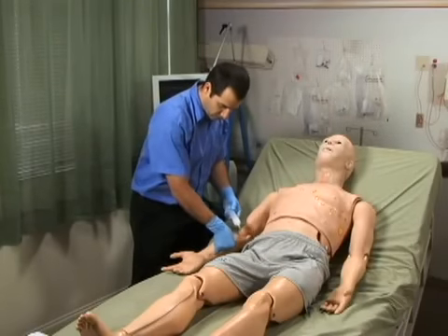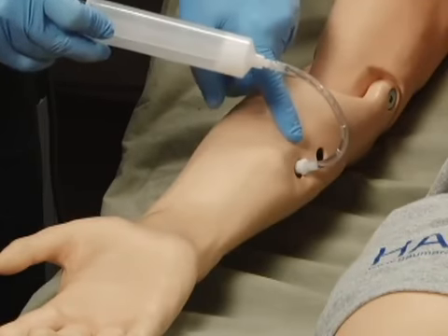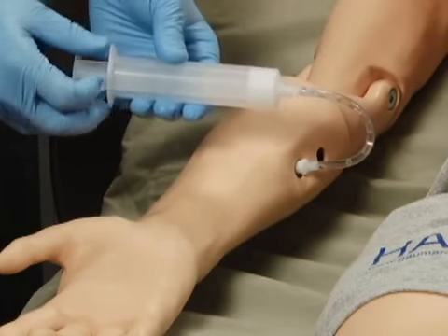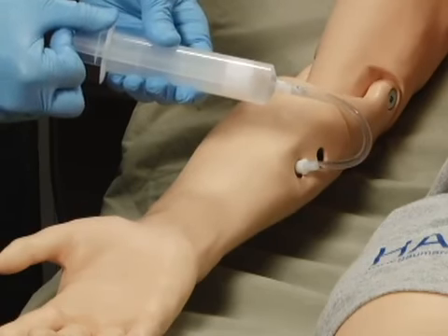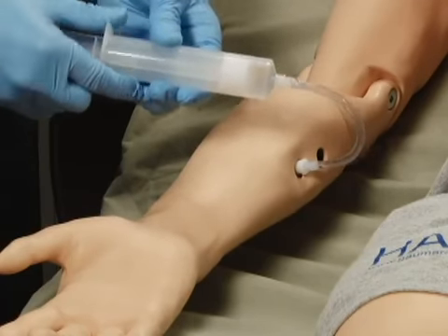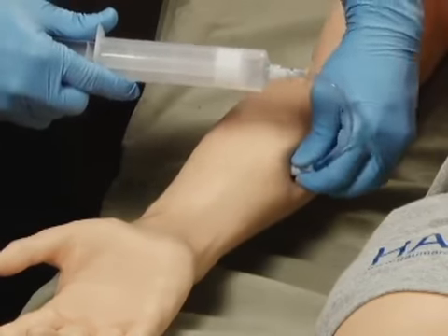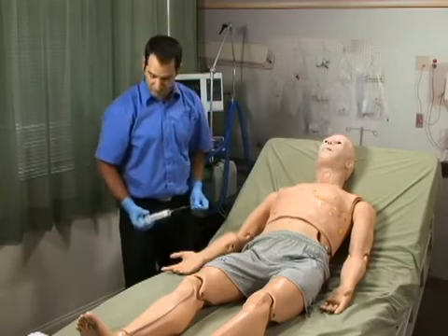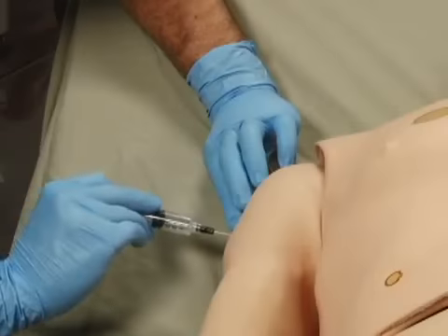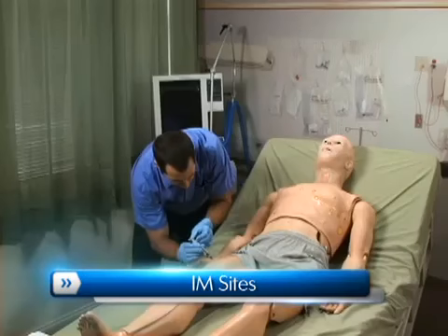Note, to simulate a patient with no accessible peripheral IV sites, connect only the syringe. Pull the plunger to create suction, which will collapse the veins. Disconnect the syringe tube from the arm port while maintaining suction. The port will seal and the veins will remain collapsed. In addition, HAL has IM sites on both his deltoids and quadriceps.